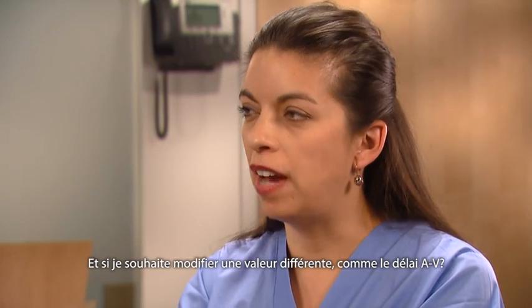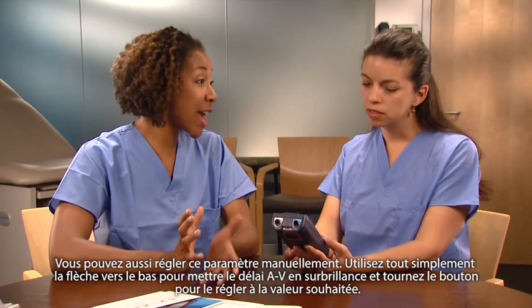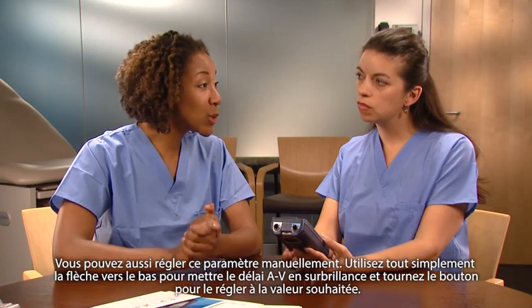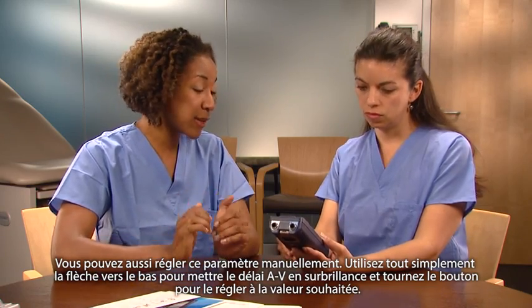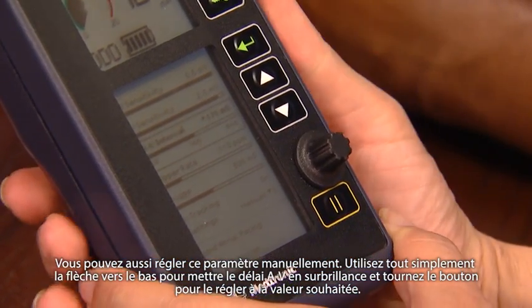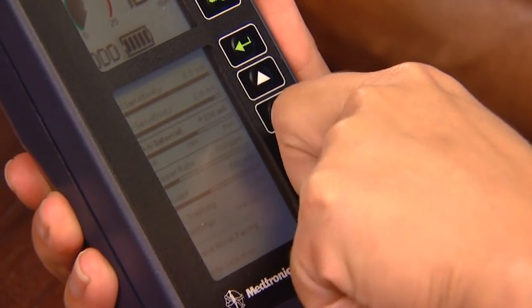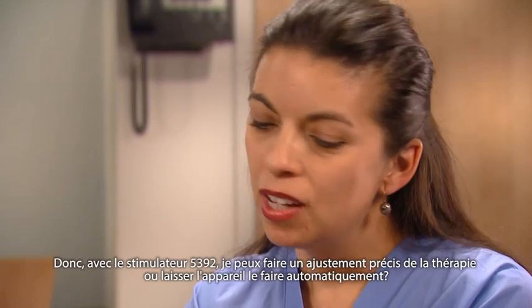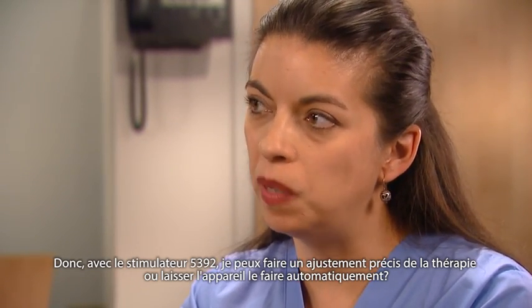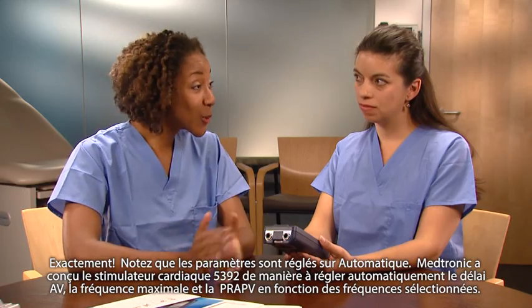What if I want a different value, say for the AV interval? You can manually adjust that parameter as well. Simply use the down arrow to highlight AV interval and turn the dial to the desired setting.